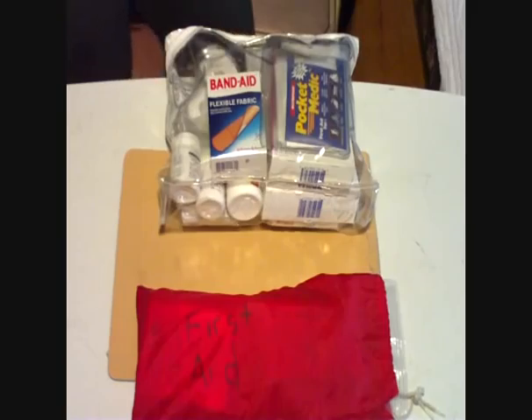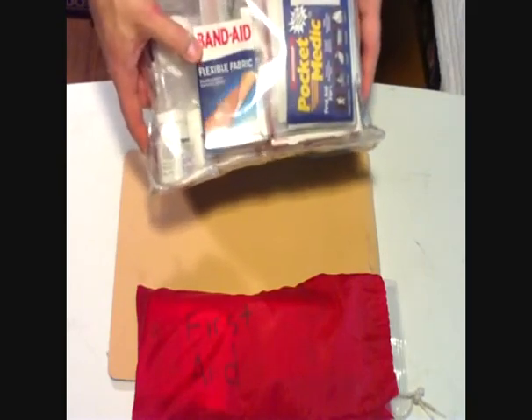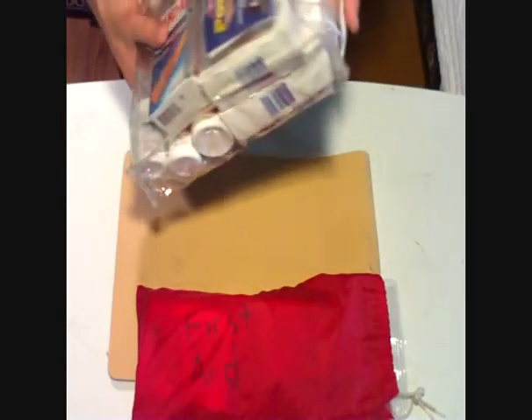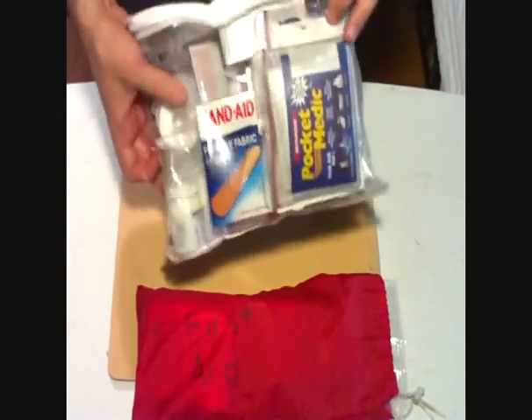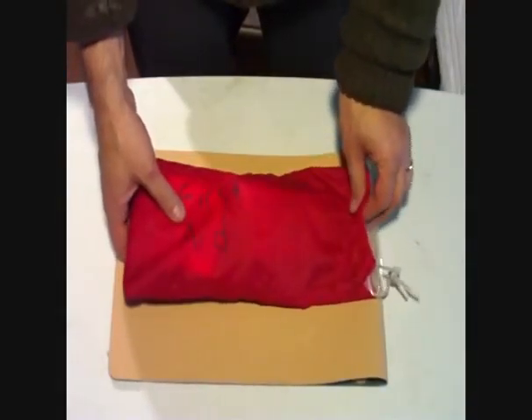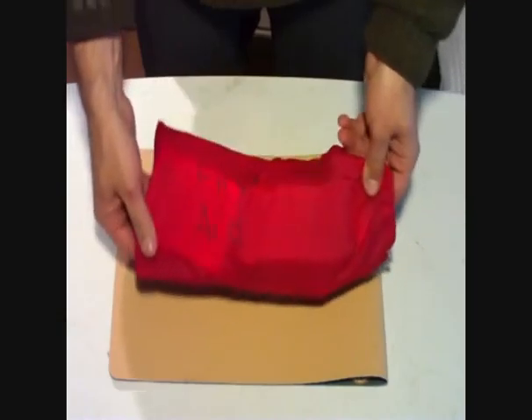Here we go with the review of the individual kit. This is all the stuff packed up in its boxes, plus extra supplies. I know it's probably not good to keep this stuff exposed to light, but this lets me know where it is. If I just stick it in a bag somewhere it'll get lost, so I'll put it in here and keep it out of the sunlight. This is all the extra stuff I showed you in the first video.